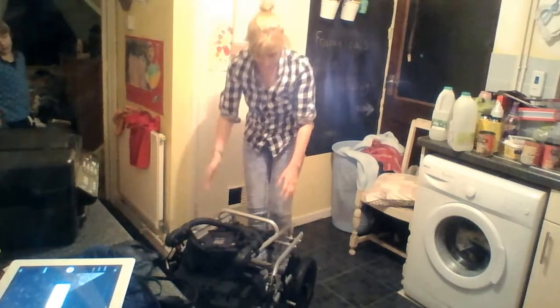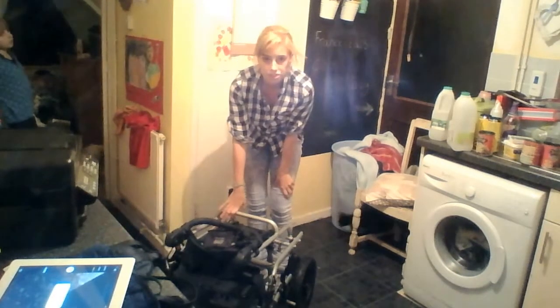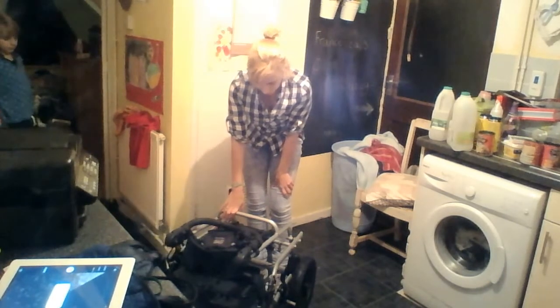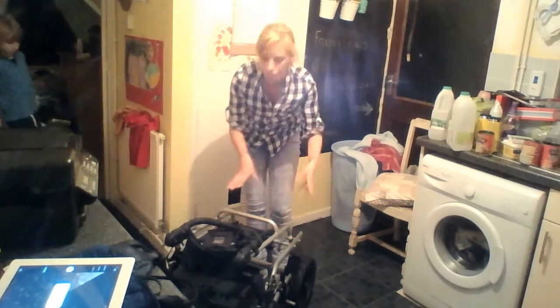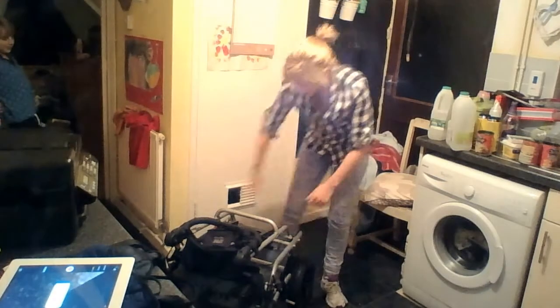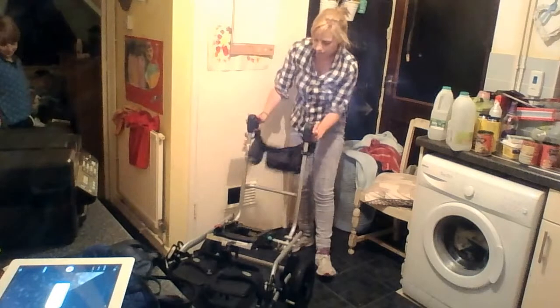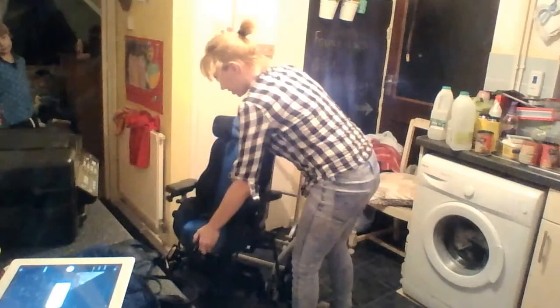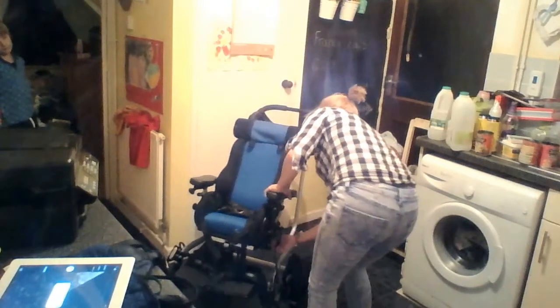This is a steel frame chair. It does weigh five stone, so please be warned — that is five stone for the whole thing. It's going to need some good muscles to lift it up. Including Ben, it weighs eight and a half stone, and lugging it — it's not easy.